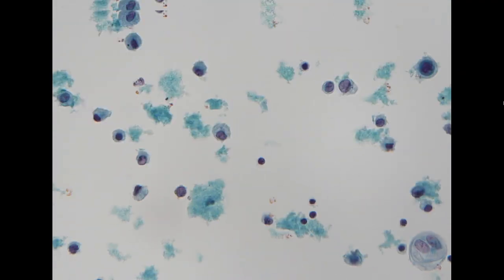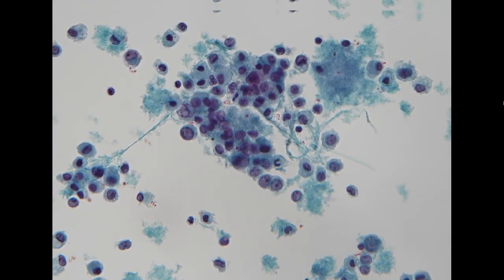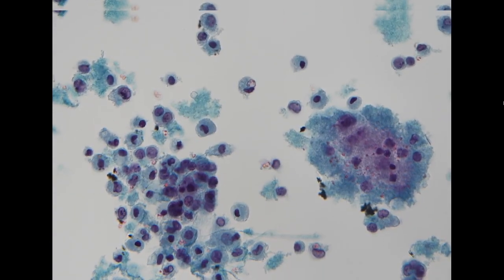On the website, the lesion was positive for GATA3. So we usually do a GATA3 here in our hospital as well. So this is positive for breast cancer. Today we have our own cases. We have 2 or 3 cases, so we will see our cases are more beautiful than the CAP's questions.